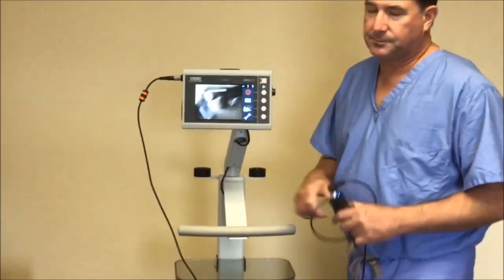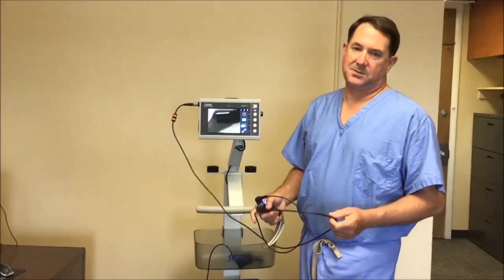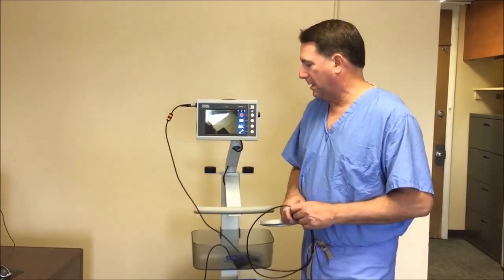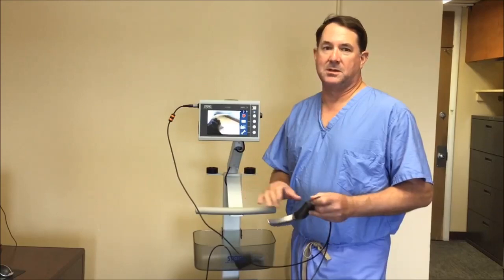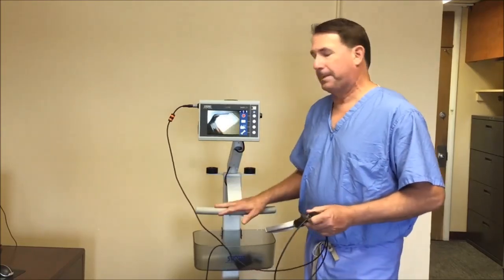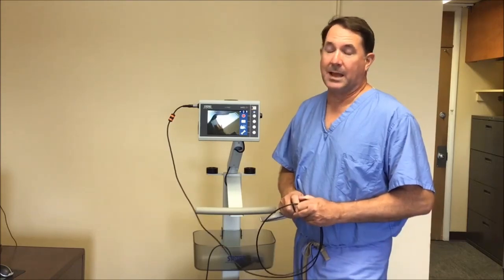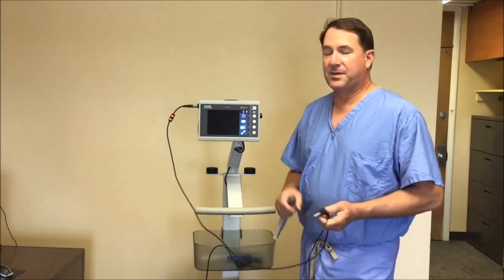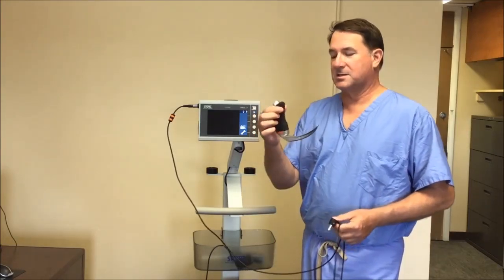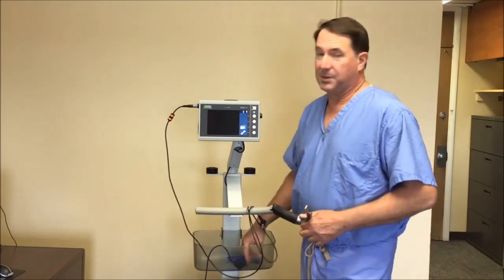I'll get this device out around the last week of September or early October, and I'm going to tell you upfront the absolute minimum you need to know. This device does all and more of what our current devices do, but the key thing you need to know is that the type of blades you use for this are completely different.